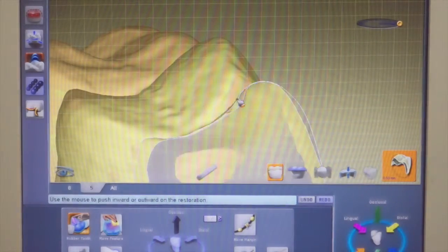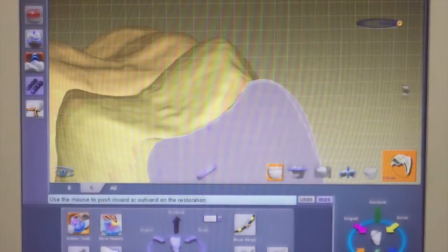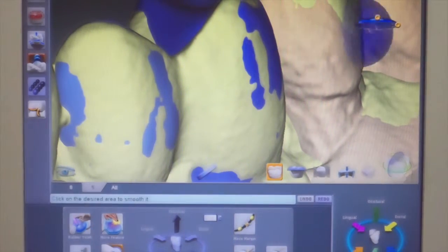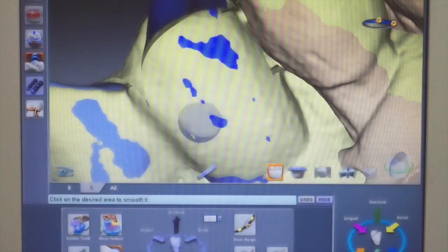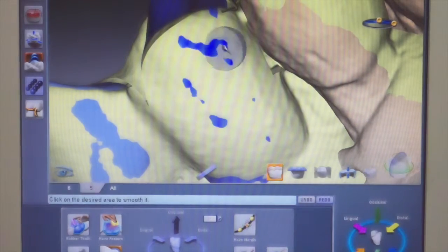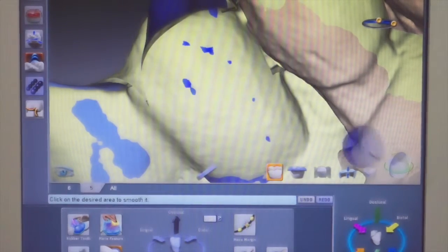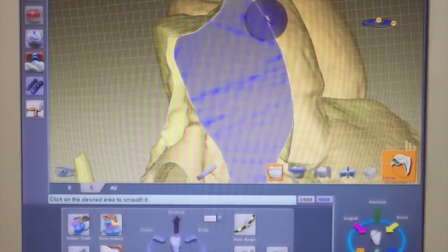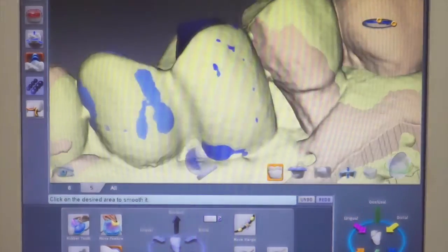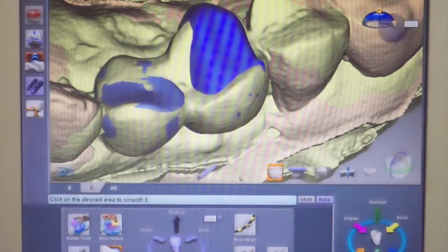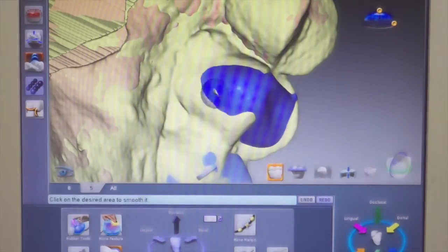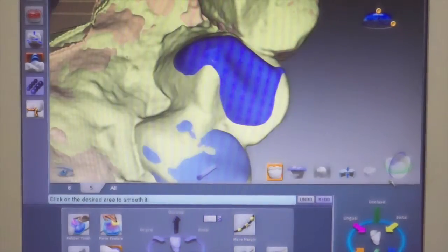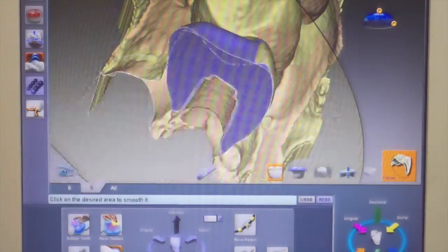Very close now. In some areas you might want to adjust, and it just depends on how close you really want to get it, but we know we're really close right here so the intensity of smooth tooth is going to be really attenuated now because we just want to take it back a little bit. Let's see what we've managed to accomplish now. See how close we are now? That light amount of smooth tooth has really aligned our template and our design. I think you understand the concept of inflated tooth. We inflate it using rubber tooth and then we bring it back using smooth tooth, occasionally checking to see how we're doing with slice plane.